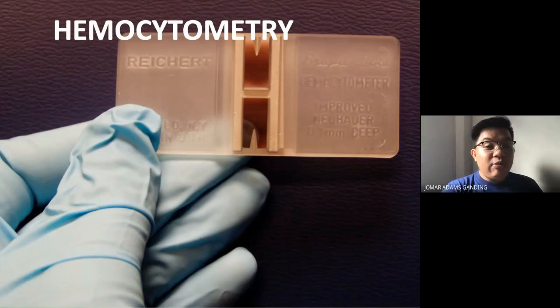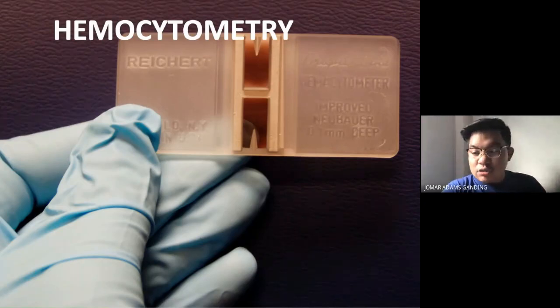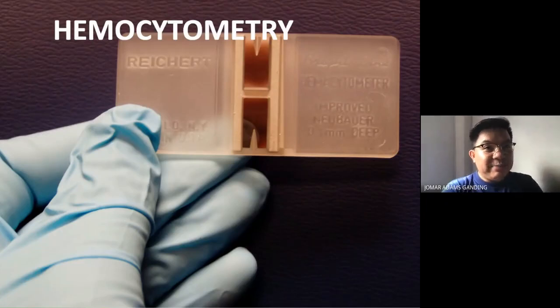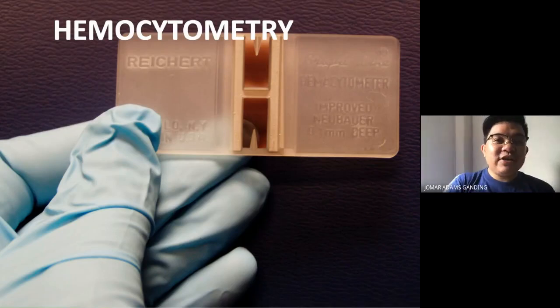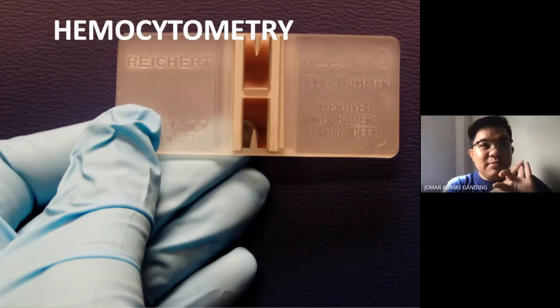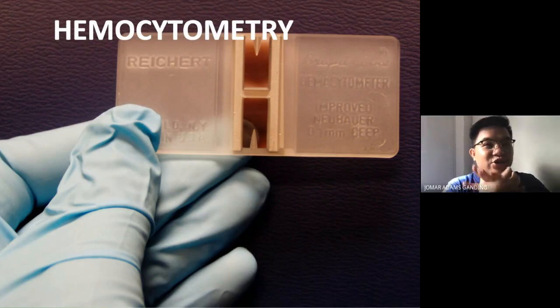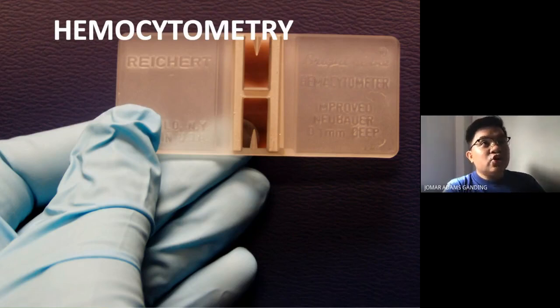The hemocytometer, by its definition, allows us to count different types of blood cells — RBC, WBC, and platelets can all be counted using the improved Neubauer chamber.